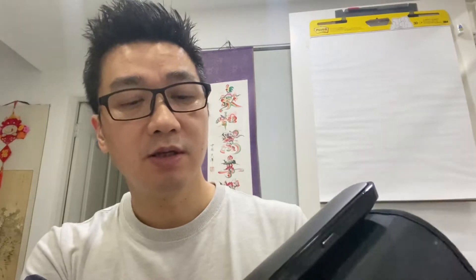The Apple Watch hasn't launched this year with a blood pressure device, so it's going to be a year away. So I thought, okay, I'm going to try a device specifically for blood pressure so I can measure it through the day. I've got one of these arm cuffs — the Omron auto cuff — and that's really good. However, I can't wear that everywhere, so I want to be able to measure blood pressure through the day without being invasive and without a cuff. So I thought I'd try the new devices out there.